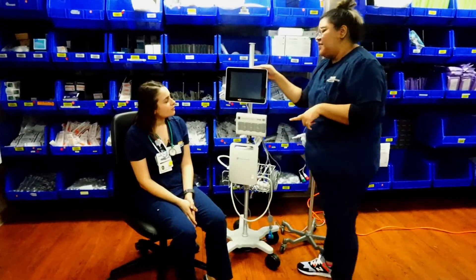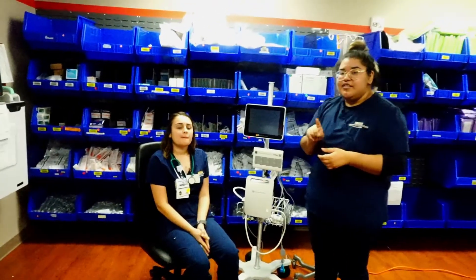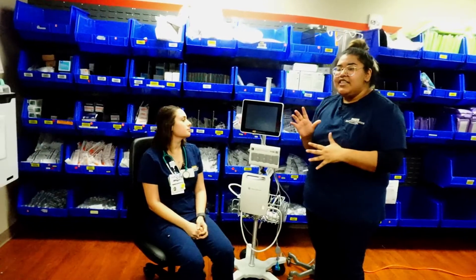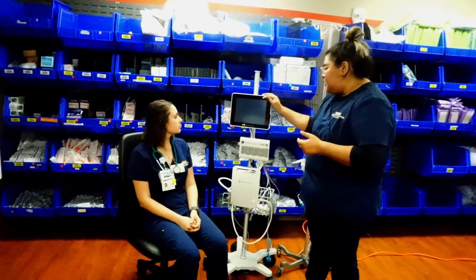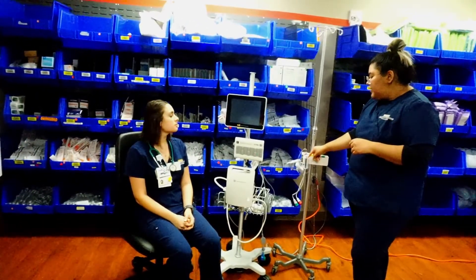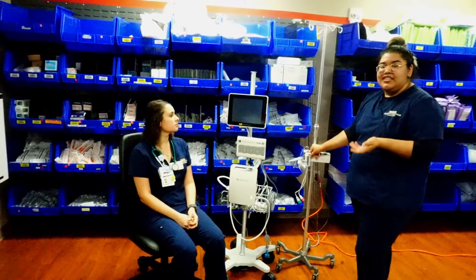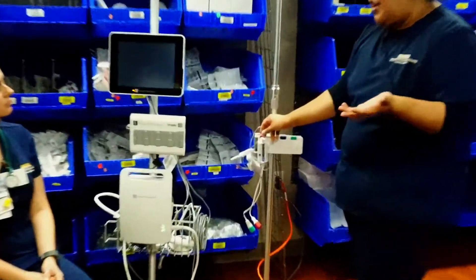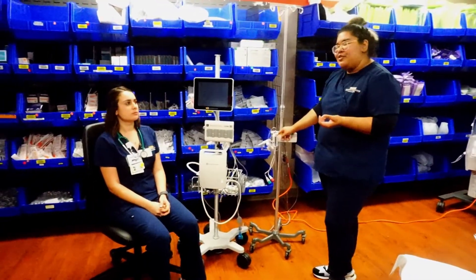We're going to set up the EV1000. For the EV1000, remember you can do it two ways: non-invasively or invasively with an art line. If you're setting up non-invasively, you'll need a finger probe cover and the machine. If you're setting it up with an A-line, you'll need your flow track arterial line setup. If the patient is getting an A-line and the physician wants the EV1000, make sure you grab the set with the flow track.